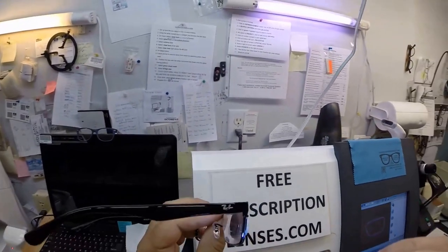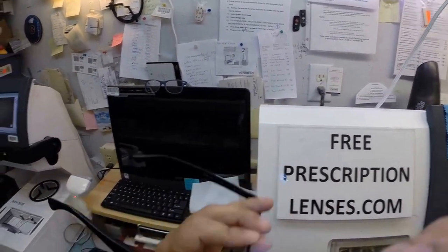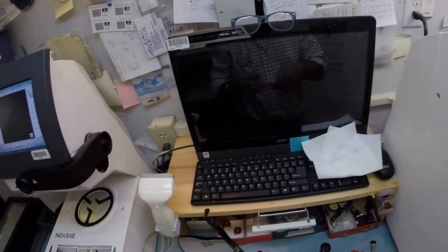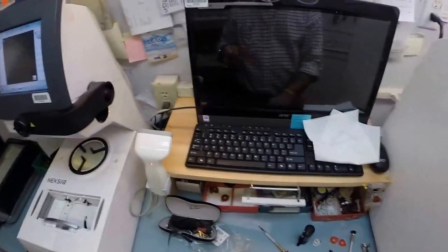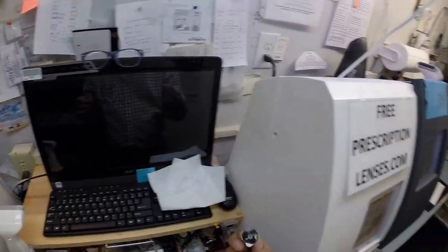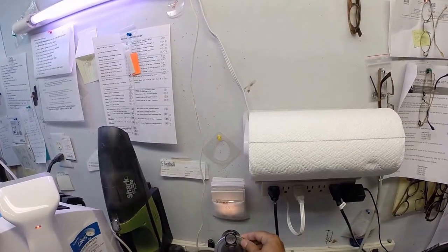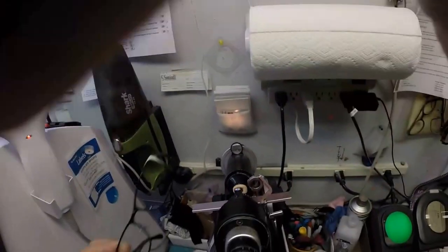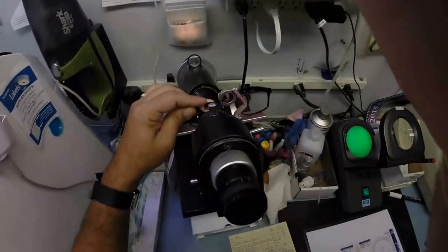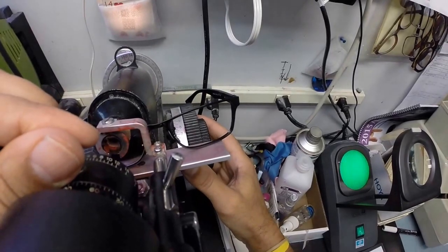I'm going to take this block off. The red dot is still there. I'm going to come down to my Marco 101 lensometer. Place the axis wheel at 135. Put that in, check the power of the lens. We're in the high minuses for the last one I just did, just cut a minus 10. So I'm at plus two.